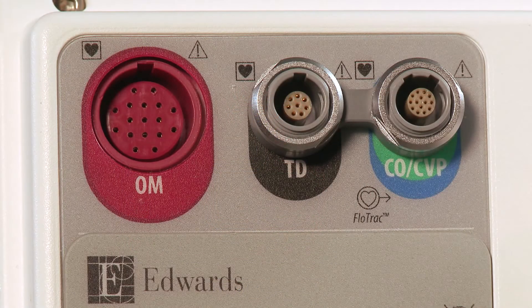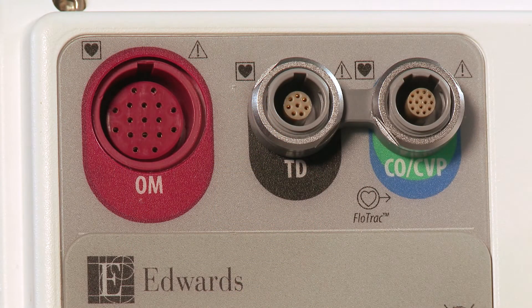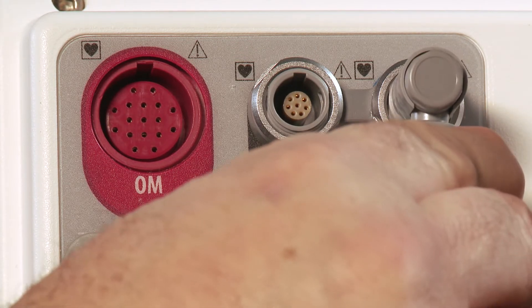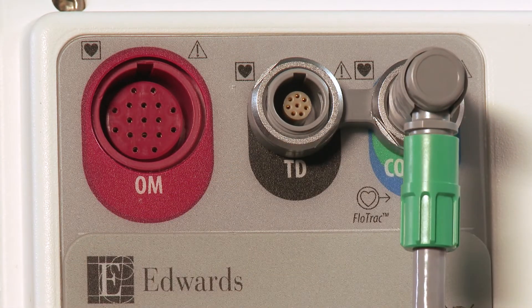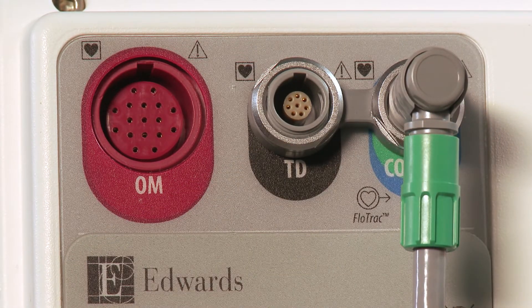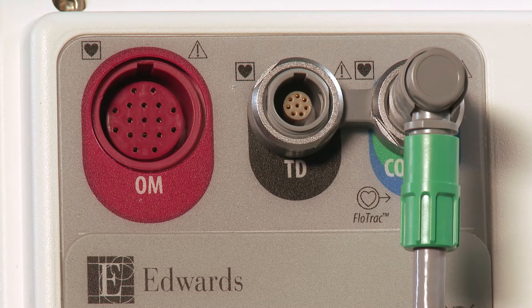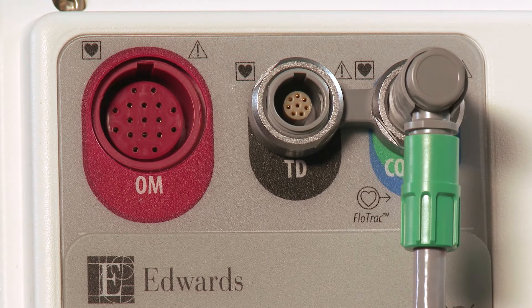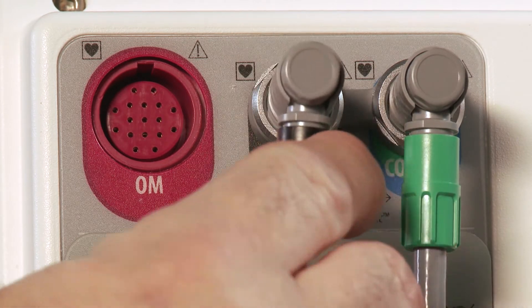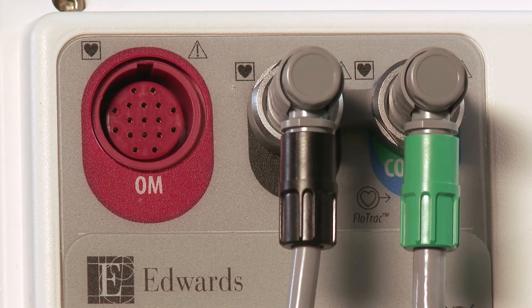Insert the trifurcated pressure cable into the green and blue color-coded CO-CVP pressure connection on the back of the data box. Insert the thermistor cable into the black color-coded TD thermistor connection on the back of the data box.